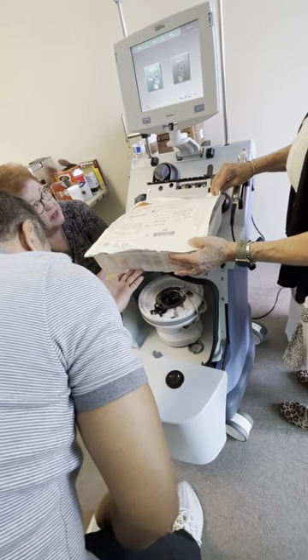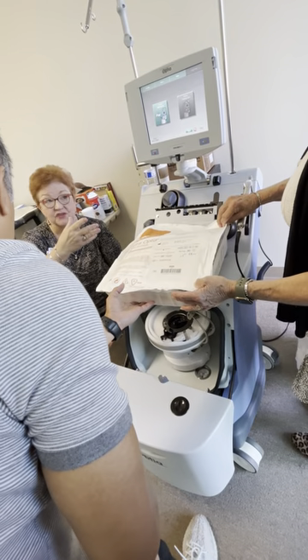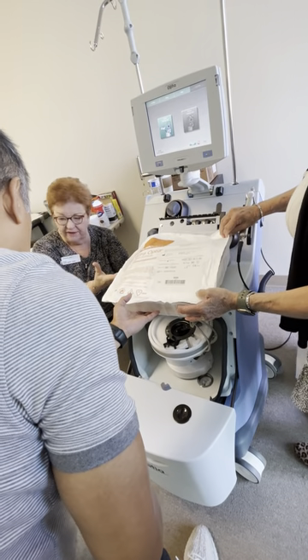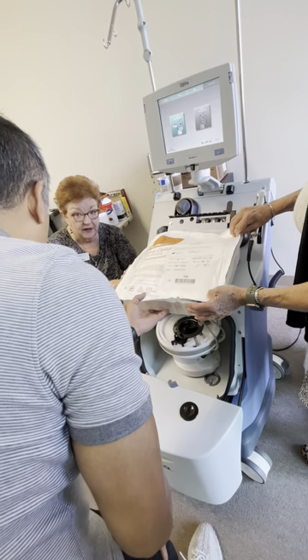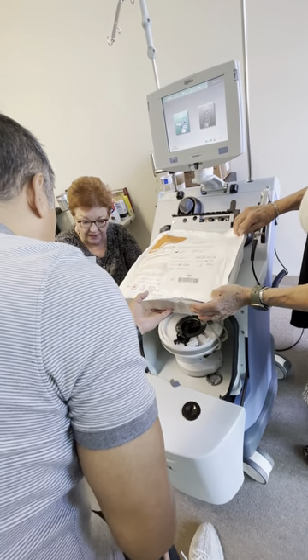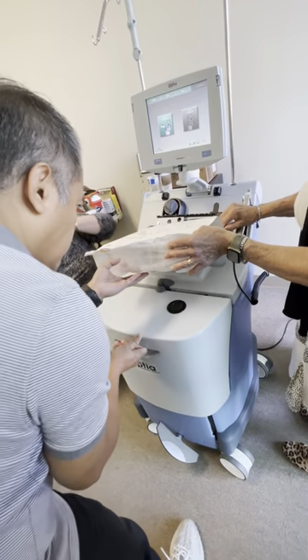The brackets mean it's standard. The reason I'm asking you to do this is unfortunately we've already gone past these screens. I'm not going to make you turn the machine off and turn it back on again — it takes too long to boot up, but those screens would have been there. Exchange set, standard filler. Close the door, because we would use a different kind of filler when we do another kind of procedure.